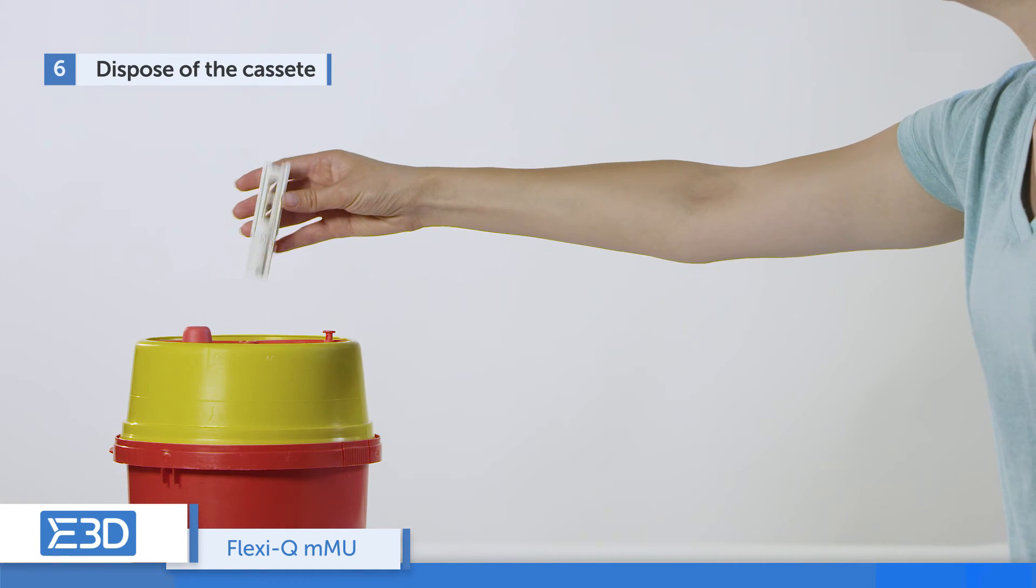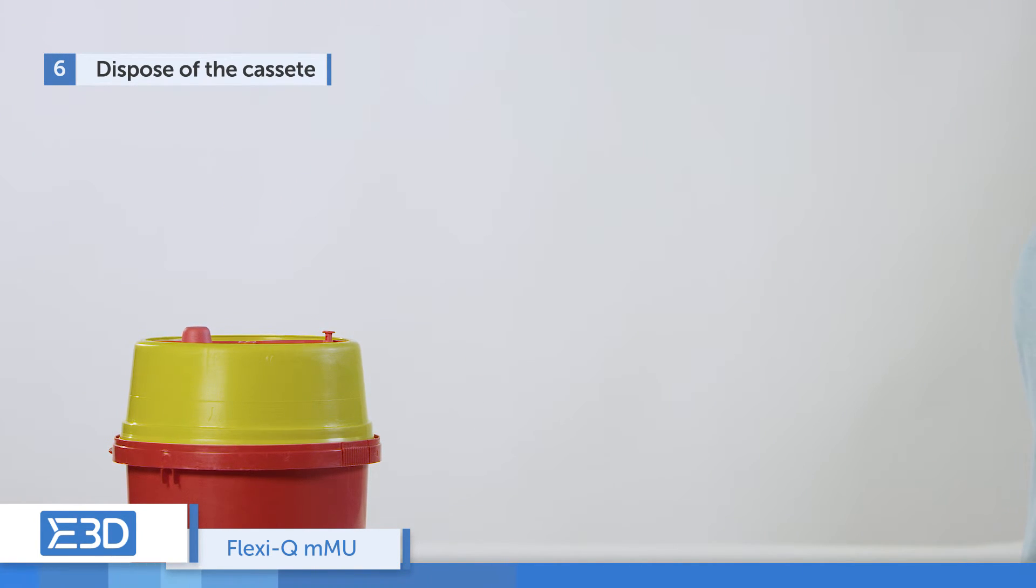Dispose of the cassette in a sharps container. The device is ready for its next injection.